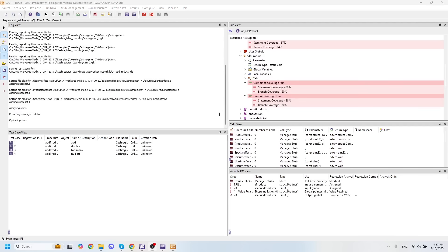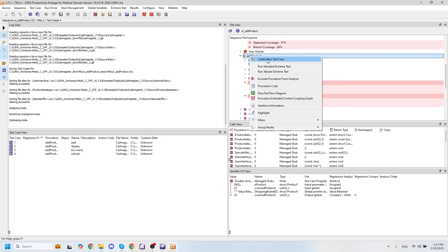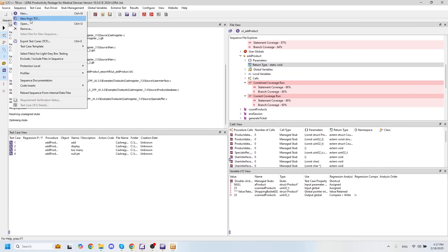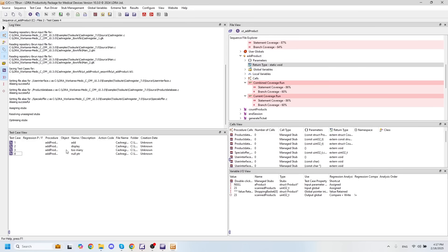If we want to run some unit tests on our code, we have a couple options, we can go in and create unit tests manually by creating a new test case here. Alternatively, you can actually import different sequences from a TCF file, which allow you to import multiple test cases to be run and passed around between your teams.